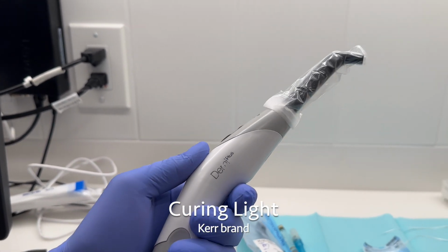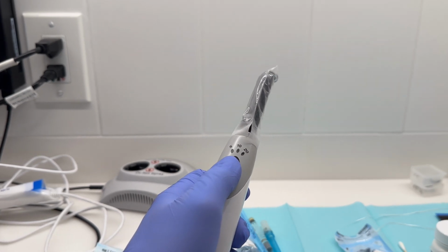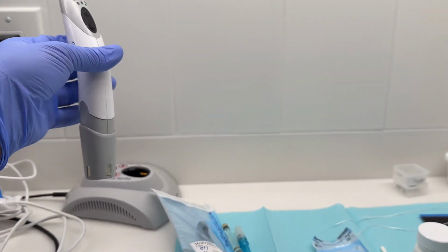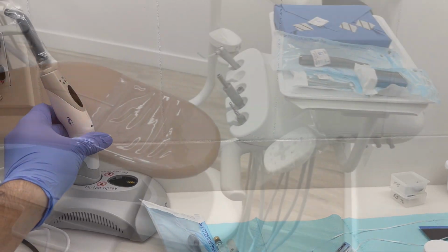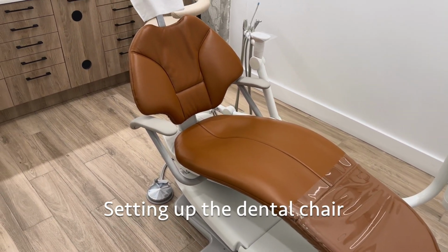These come in all shapes and sizes. It's always good to test that your curing light works prior to your restoration. The button can be toggled to change the amount of time that the curing light is shining for. Next, we'll talk about setting up the dental chair.